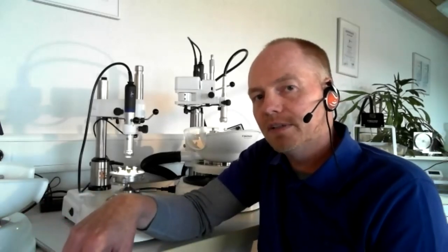Today the technicians are working with CAD CAM systems. For example, when they are working with telescopic crowns and they want to create the secondary crowns by a CAD CAM system, they are processing the primary part by hand with the milling machine, for example with the turbine, and then they put it inside the scanner, an optical scanner. Then you see the results on your screen and the software tells you exactly where there are some mistakes in the angle.